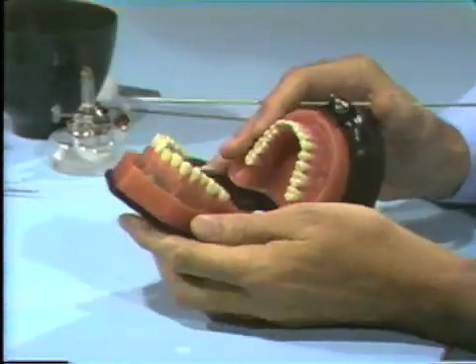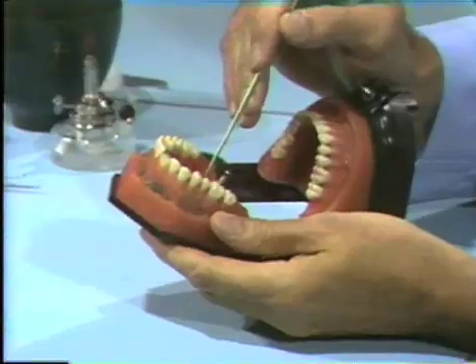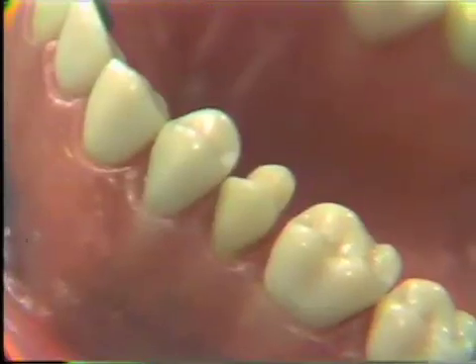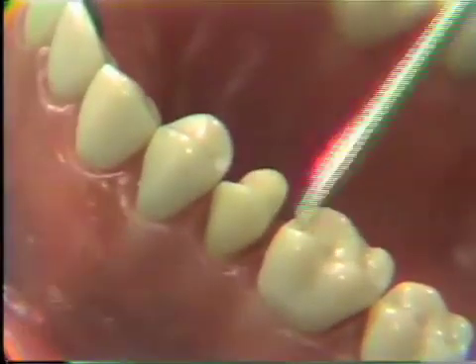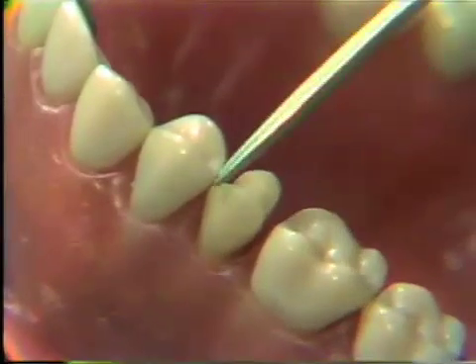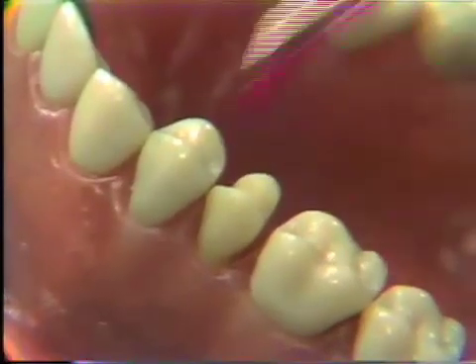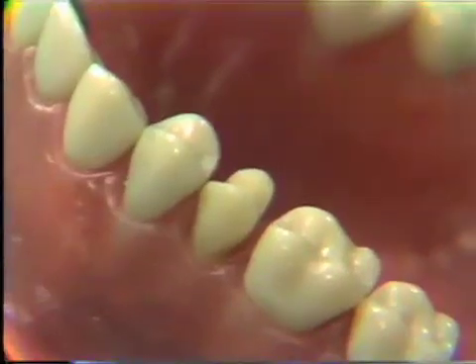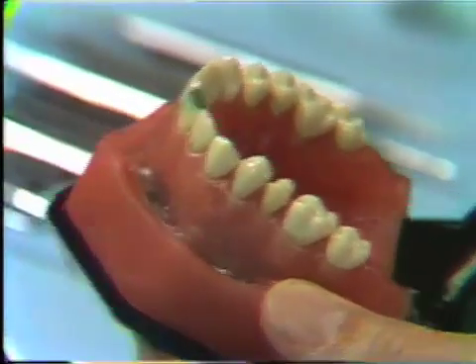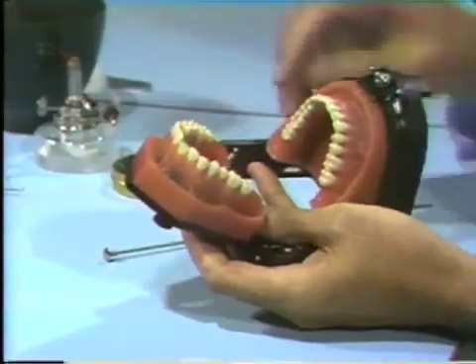Our first step is to fill in the prepared cavity with wax, then place the lingual cusp and the buccal cusp to show how to set cusp height. At the same time, we will be forming the contacts between the approximating teeth and roughly producing the marginal ridges, which should approximate the height of the opposing marginal ridges — the same height as the marginal ridge on the bicuspid and the molar. We'll do the highlights and show you how to follow each step.